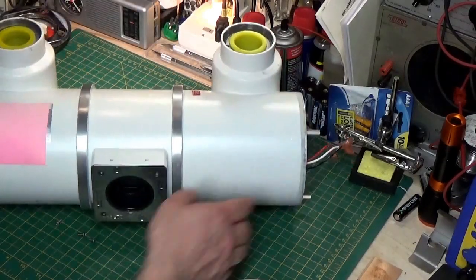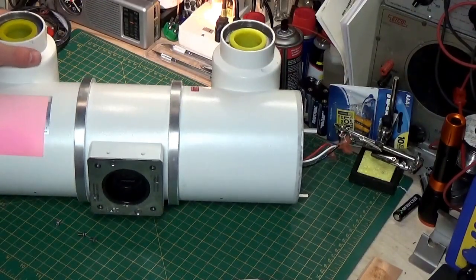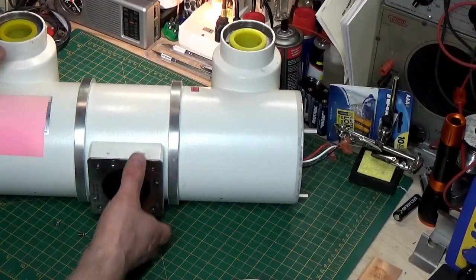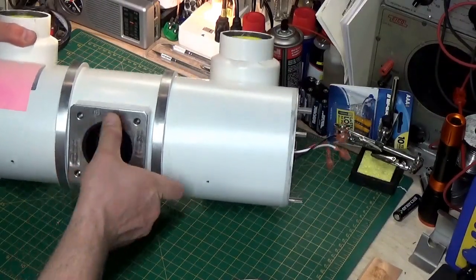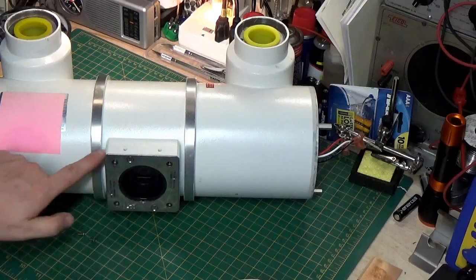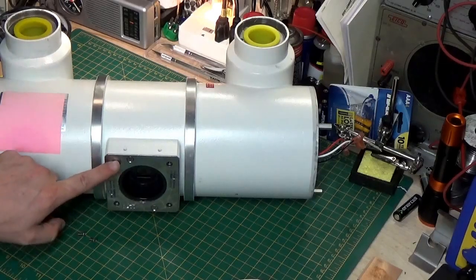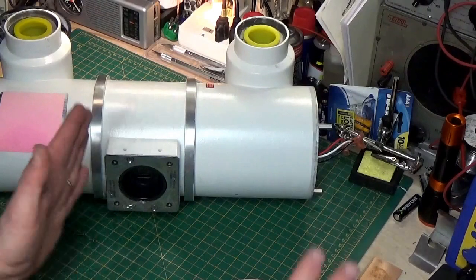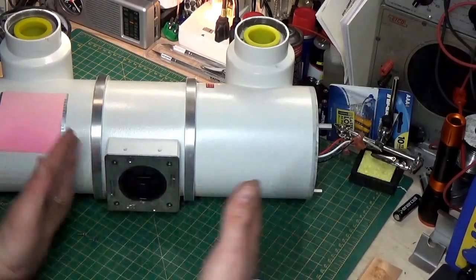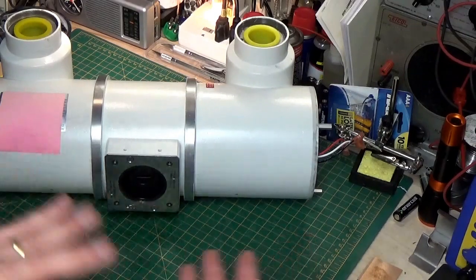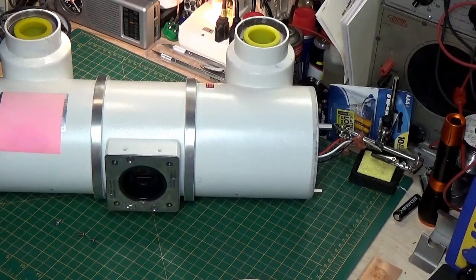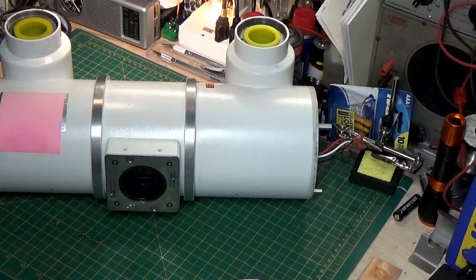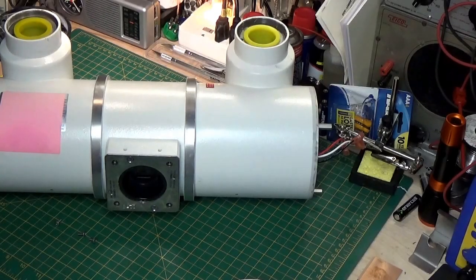Now, if you look at the front, we looked at that port. The only place that x-ray comes out of this tube is this little port here. And if you notice these bolt holes here, this is how the tube mounts to the system. And there's a lead box that mounts on the front of it with metal lead shutters that can open and shut. And that's called your collimator. It collimates the x-ray down to the size of whatever anatomy you're trying to x-ray. Again, safety. We don't want x-ray going anywhere, but where it needs to go.